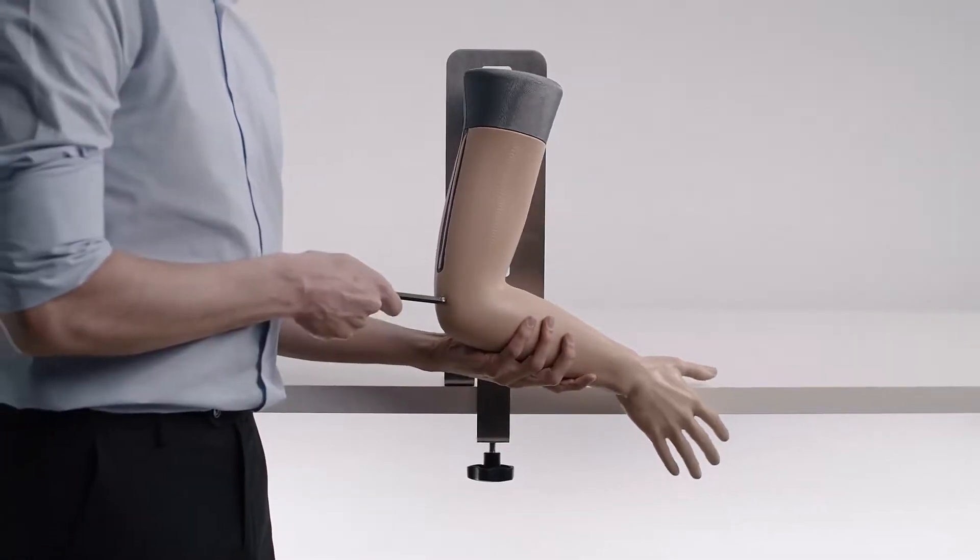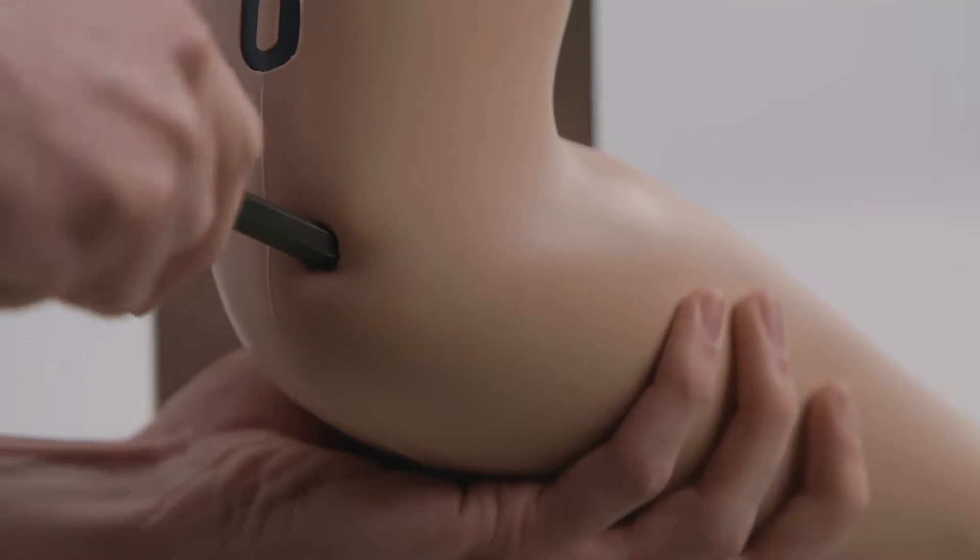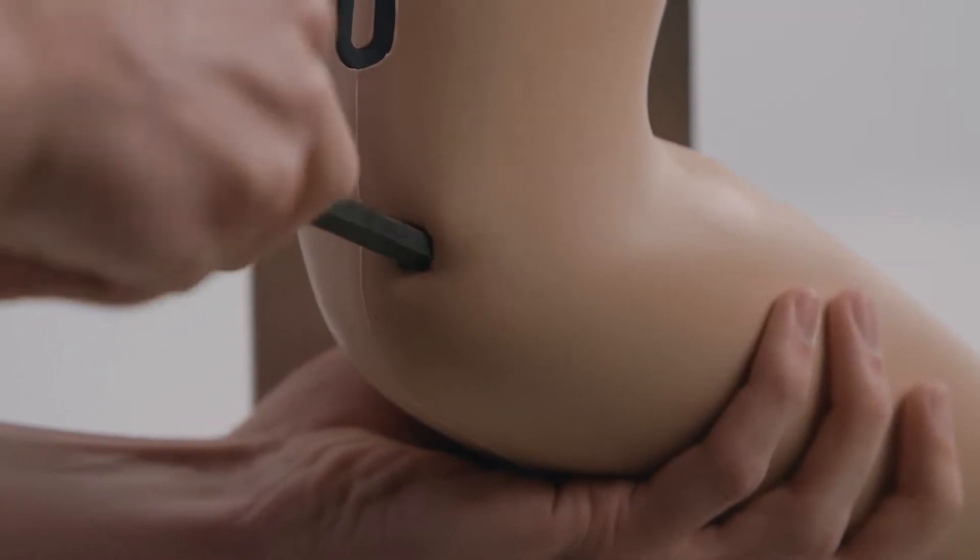The stand allows for individual training, whilst the adjustable tension screw is used for progressive levels of difficulty.